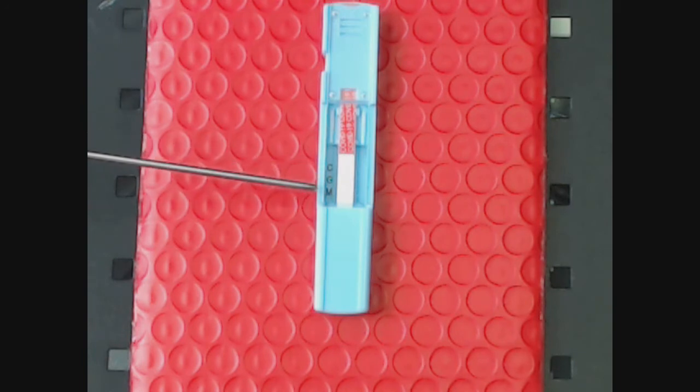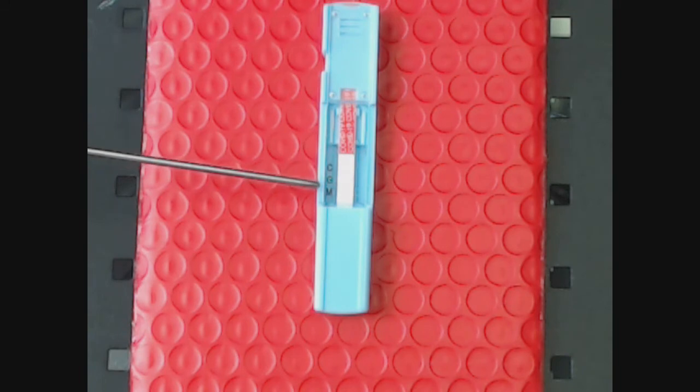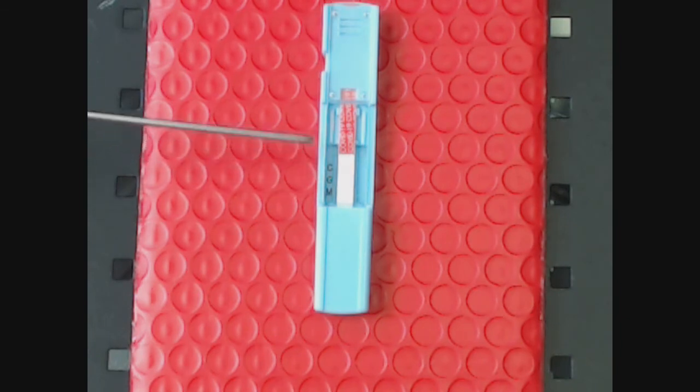These are things to know: the M and the G and the C. The results are typically done in three to seven minutes, 10 minutes to be safe. Just don't forget to slide this lower receiver up, as it is a patented device.